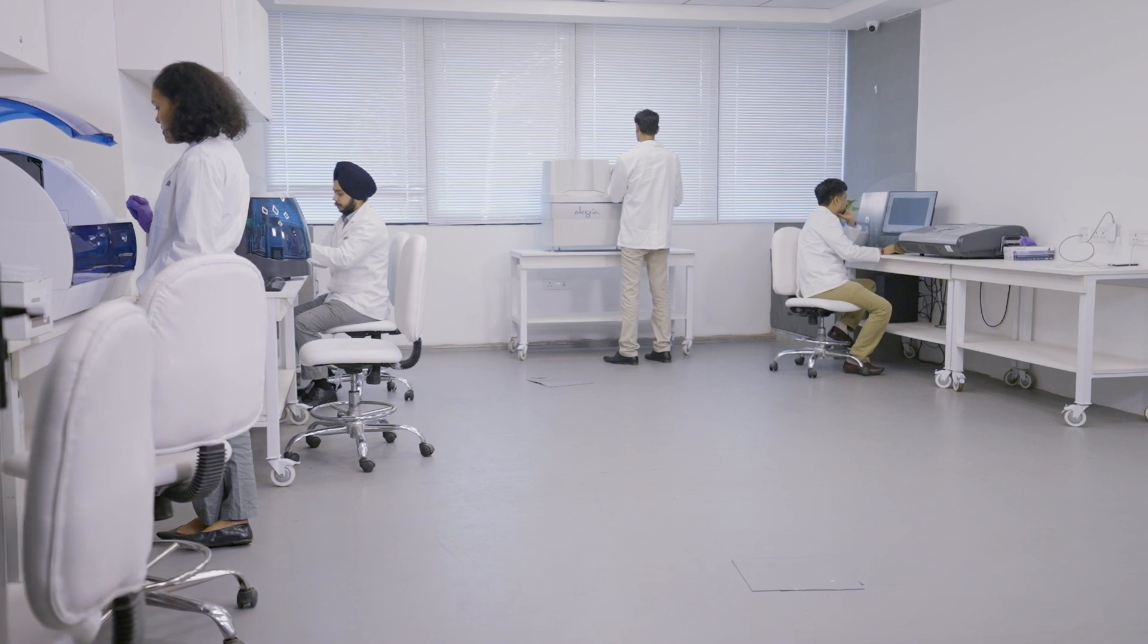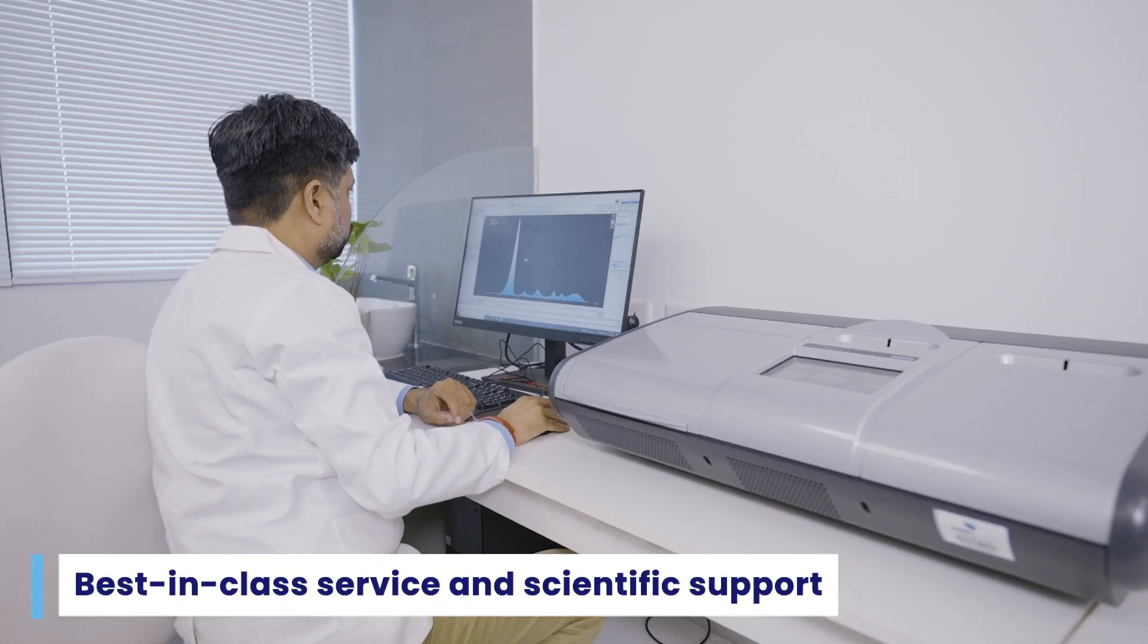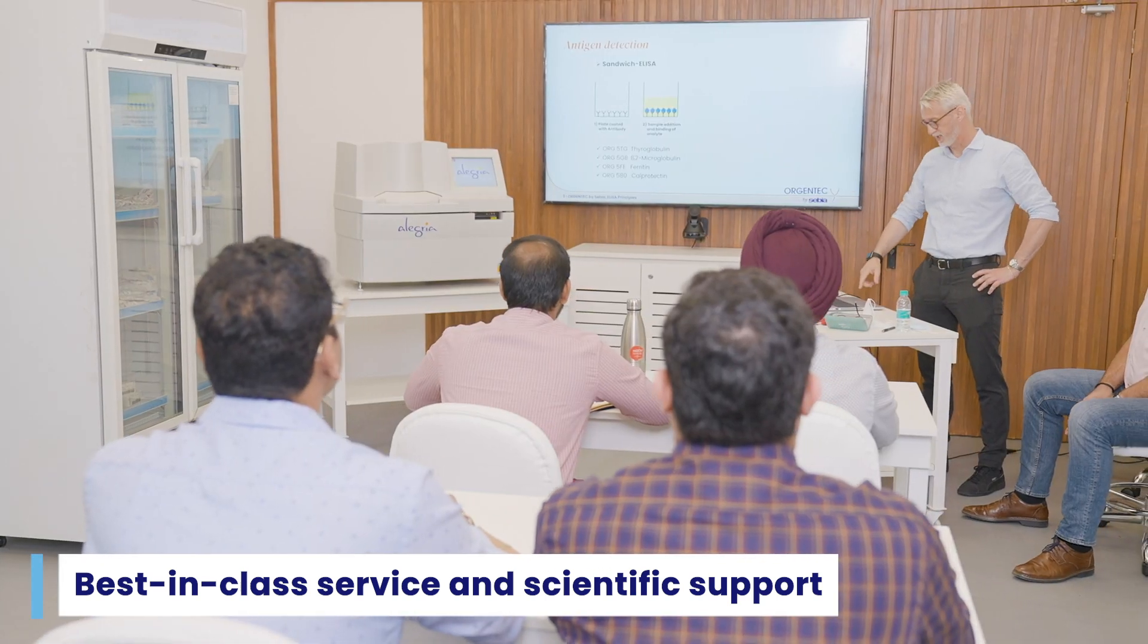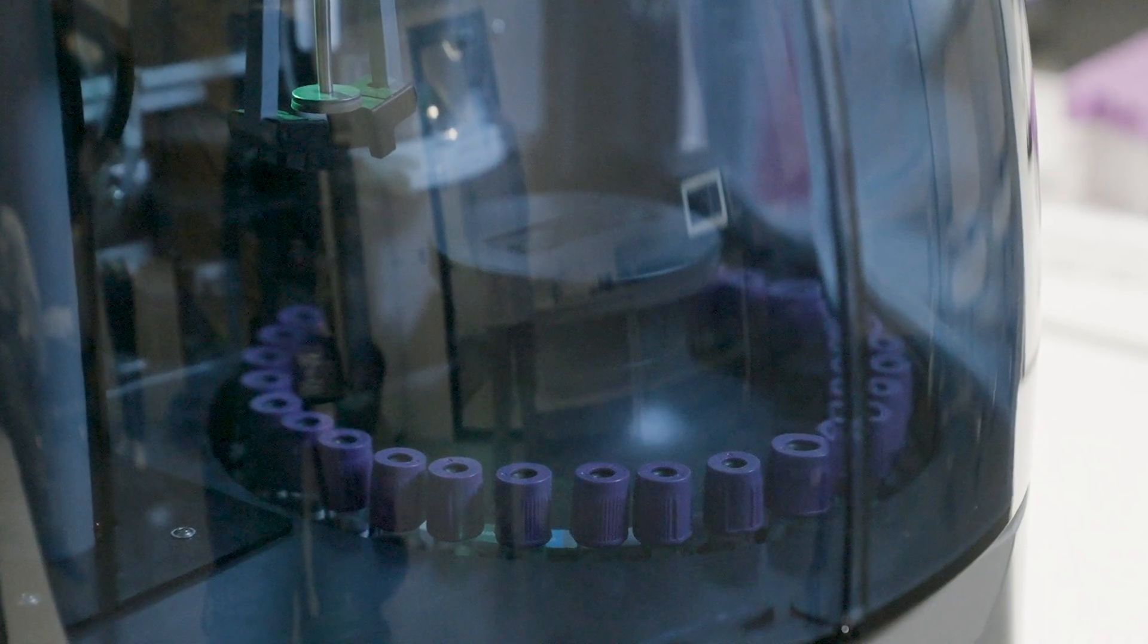Our goal is the full satisfaction of the users of our system by offering the best-in-class service and scientific support to remain close to our customers.